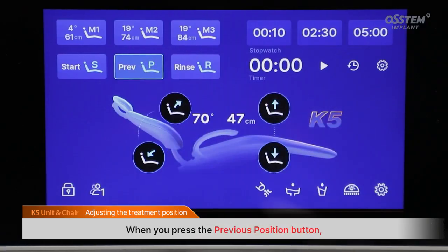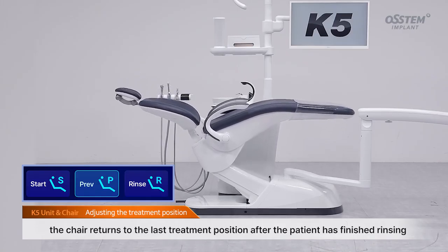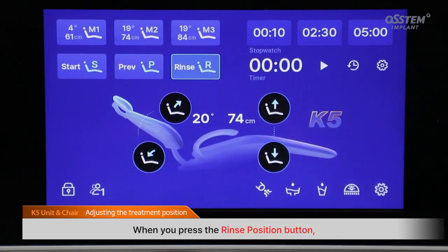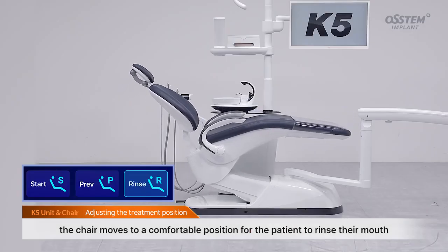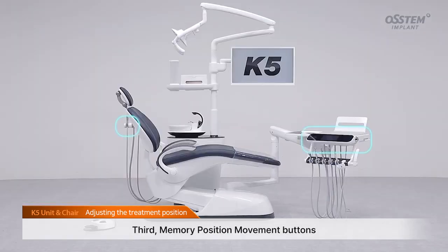When you press the previous position button, the chair returns to the last treatment position after the patient has finished rinsing. When you press the rinse position button, the chair moves to a comfortable position for the patient to rinse their mouth. Third, memory position movement buttons.